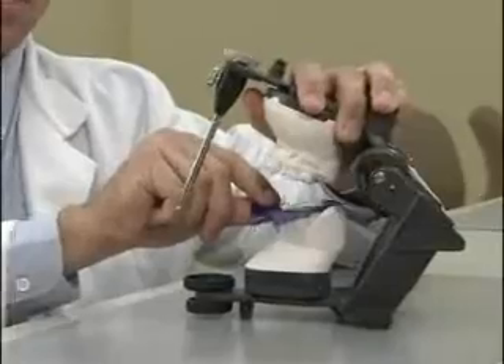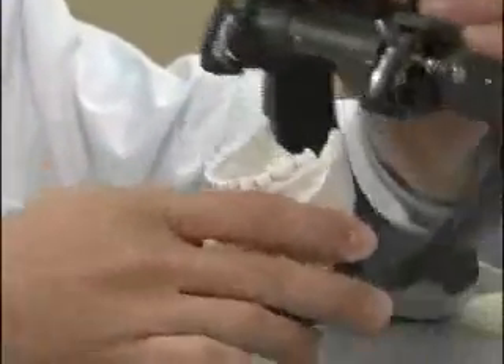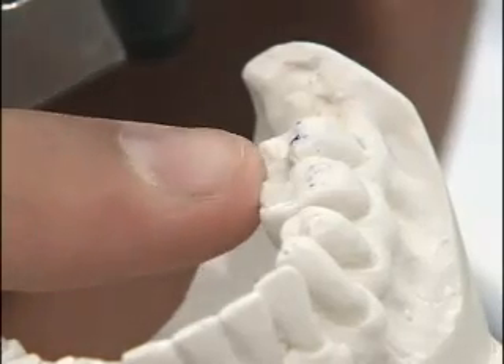Flip the film if you have single-sided paper. Now verify that your first point of contact is what you found intraorally.